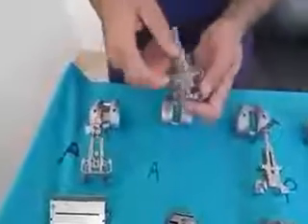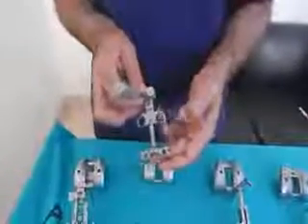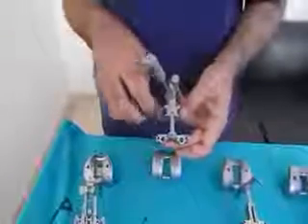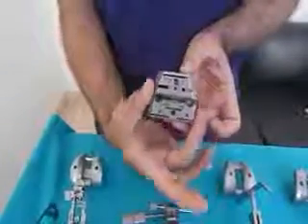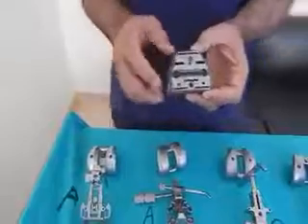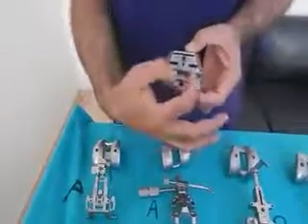This is an anterior referencing system. You will size here and rotate 3 or 5 degrees as needed, and put your pins with the anterior mechanism. If you downsize, you will not notch but you will cut more of the posterior condyles. You can put your holes here and turn the block slightly medial or lateral. The size of the AP cutting block is the same as the size of the component, so you can really lateralize. However, once you are committed with your holes, you cannot go up or down without remaking the holes — that is a slight disadvantage.